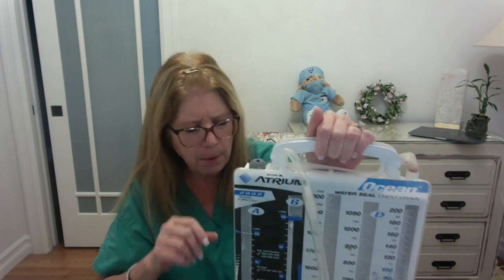It evaporates. So one of the things that you're responsible for as the nurse is to make sure that this water suction stays with the right amount of water, right? So you just set this up, you put it on 20, you put your suction on, the water in here is bubbling, and when we bubble, we want it to be just, I don't even know how to describe it. I want to say a normal bubbling, but I don't think that means anything. But we don't want this vigorous bubbling where the thing is shaking because it's bubbling so hard, right? We just want a nice pace of bubbling, okay? If that makes sense to you.